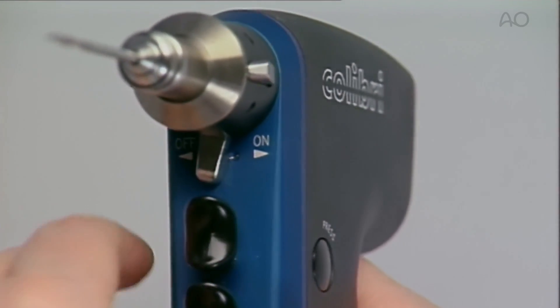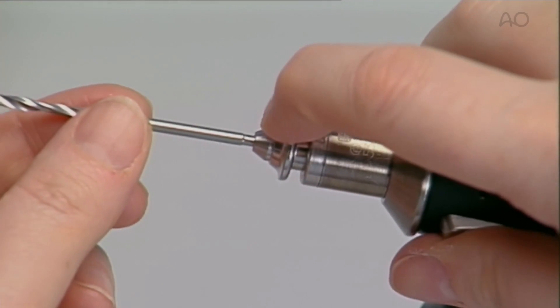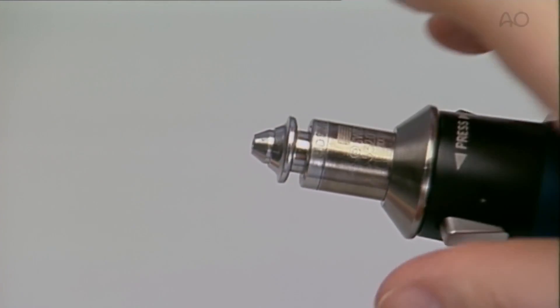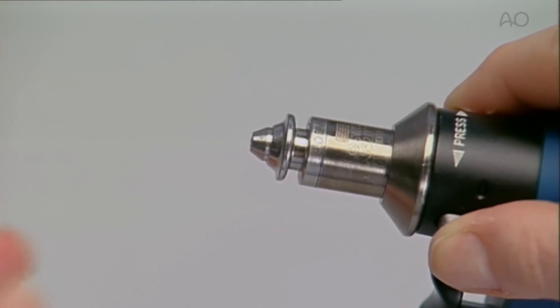After locking the machine, the tool may be removed and the attachment released from the coupling.